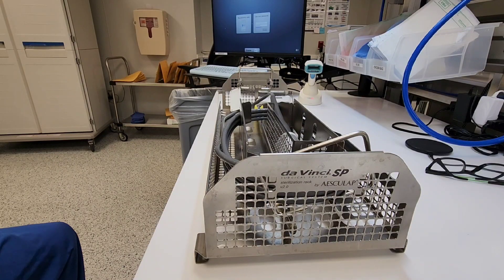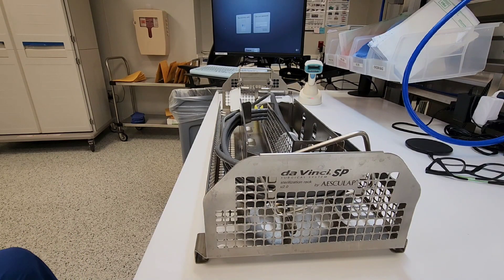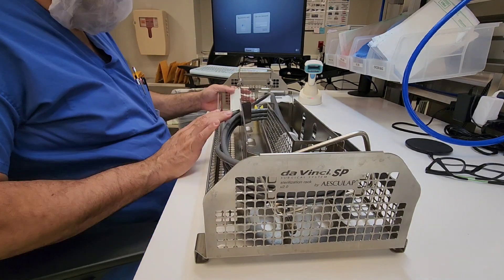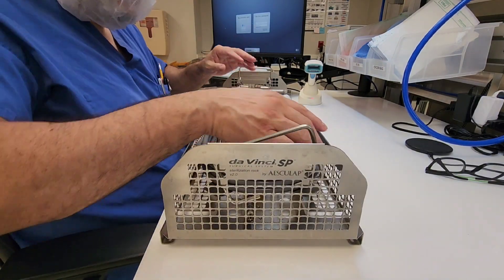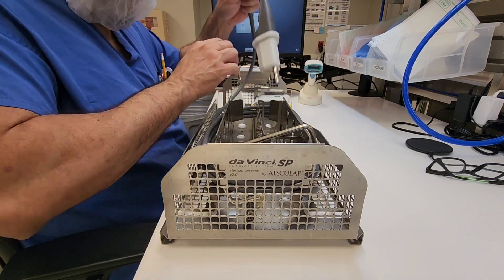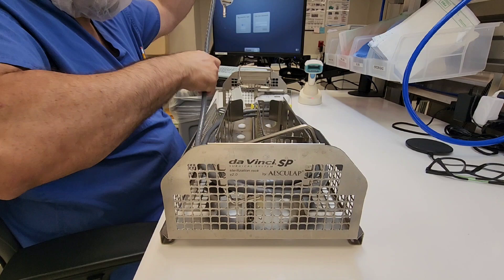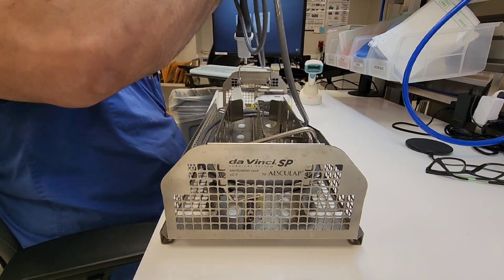All right guys, welcome back to WDYDC SP - What Do You Do Central Sterile Processor. I'm going to show you how to inspect and lubricate the portion of the device that requires lubrication according to the IFU.